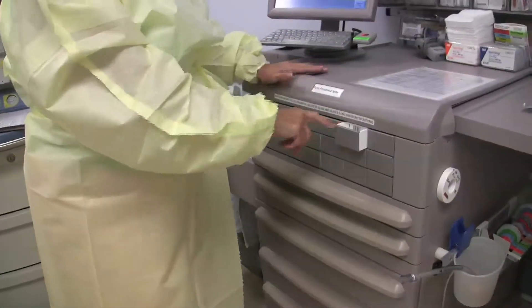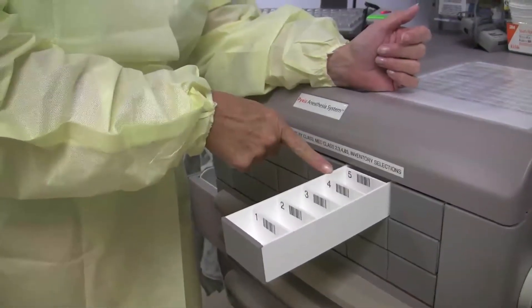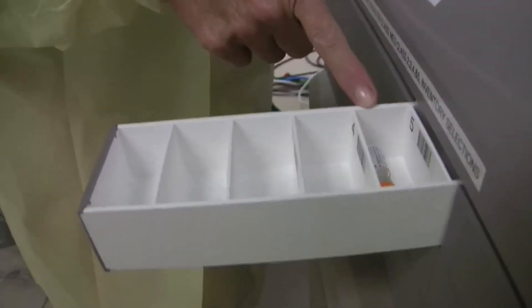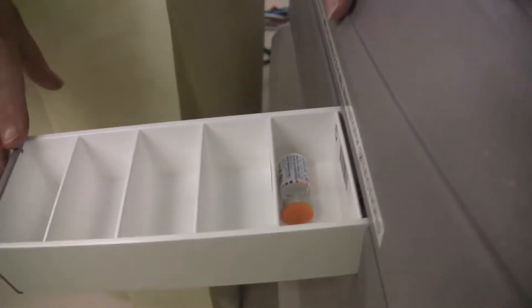This drawer opens, and I pull it all the way open until I can't pull it anymore, and only the dose that I asked for is available — one vial. There are many doses back there, but it will only pull open to exactly what you told it you needed. Previously you would order one, but multiple doses would be exposed and you were to take one — but if acting improperly, you might take more. You would get a discrepancy. If you literally took them, we would still find you. But if you canceled removal, it was as if you didn't take any because you were putting it back.